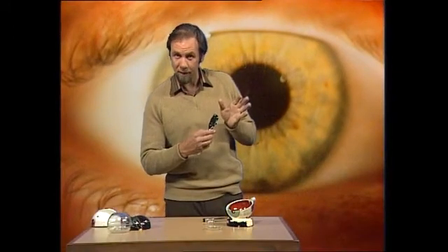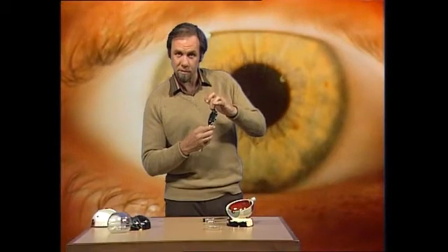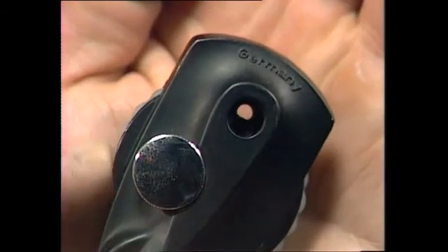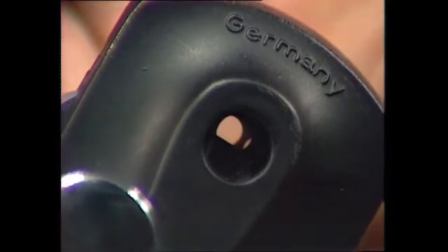What he is seeing — looking through the eyepiece — is not a blinding light, the part going into your eye, but in fact he's looking through one of those lenses and your own lens, adjusting the focus. So if I hold that against my hand, you can see that as I turn that wheel, things are going to come into focus. In this case it'll be the ridges of skin on my hand. In the eye doctor's case, it's going to be looking through your lens into the back of your eyeball until sharply in focus are all those blood vessels.